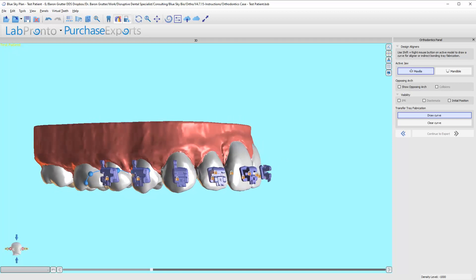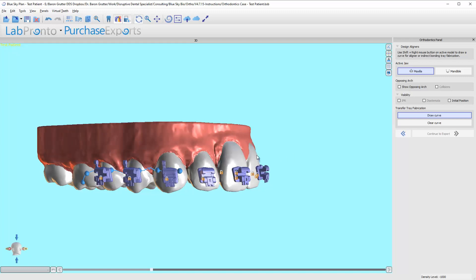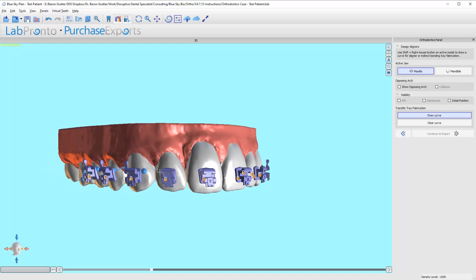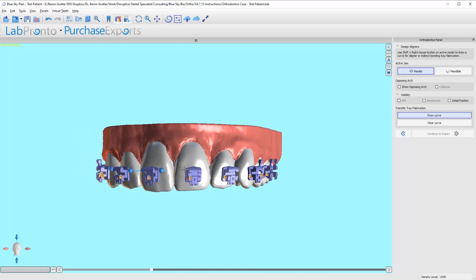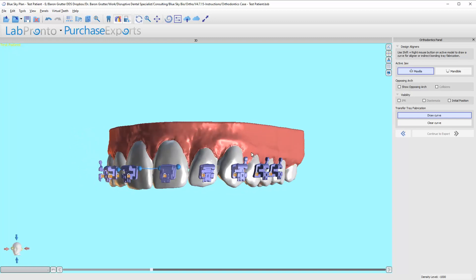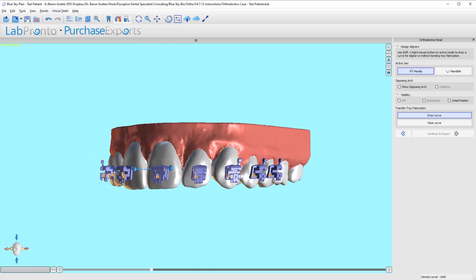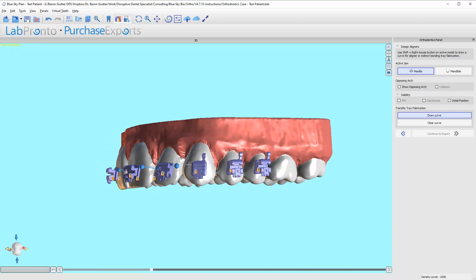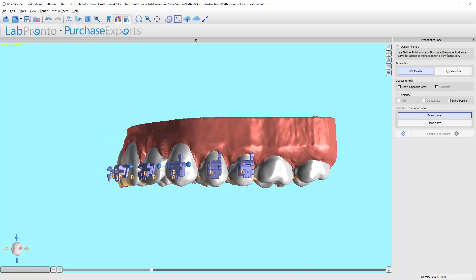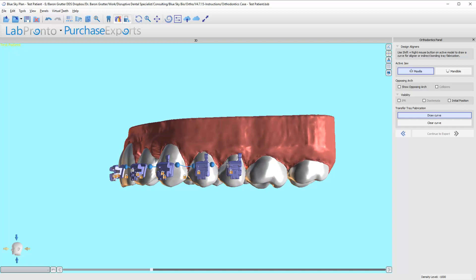You don't have to drag across the entire thing—you can just go right across the tooth. The curve line will automatically connect to each other. I find this easy to do it this way, and where you position this line is all user preference.